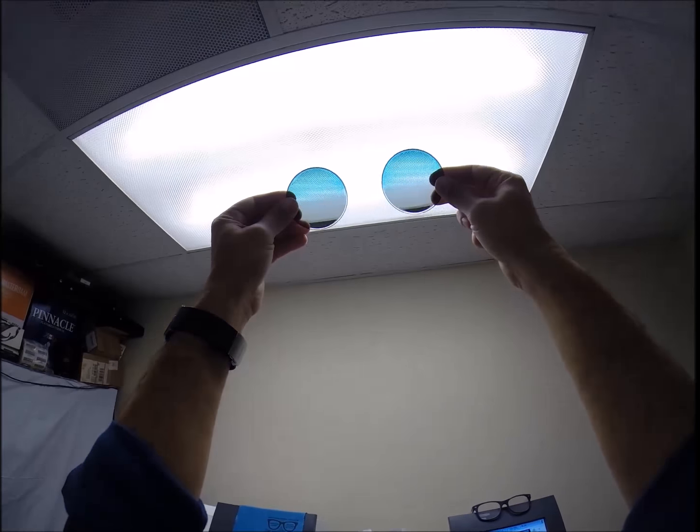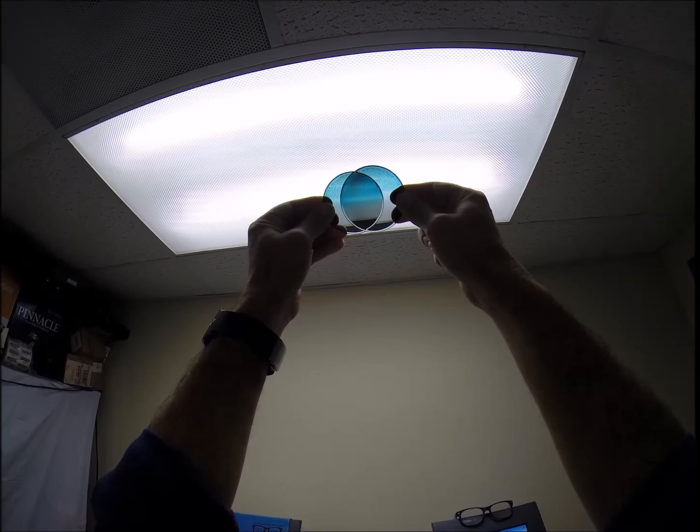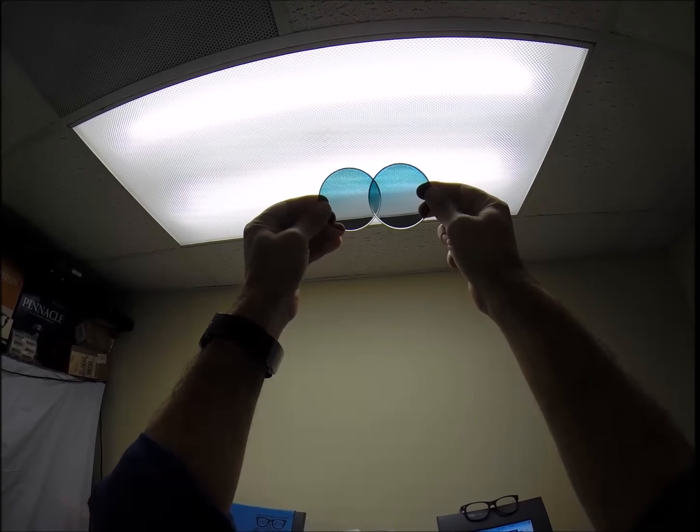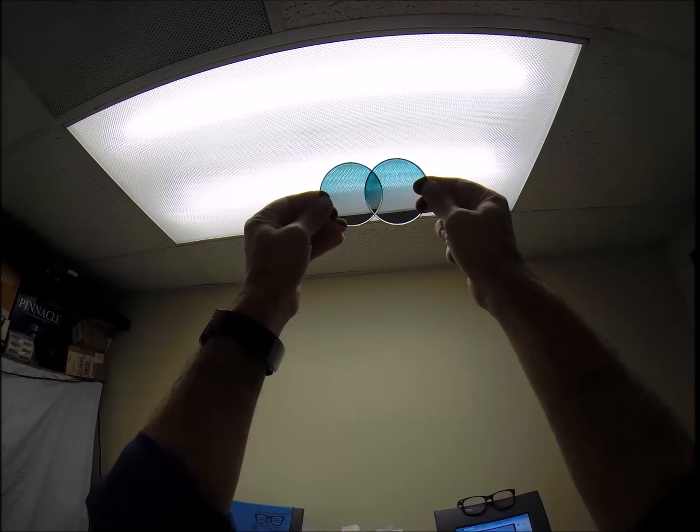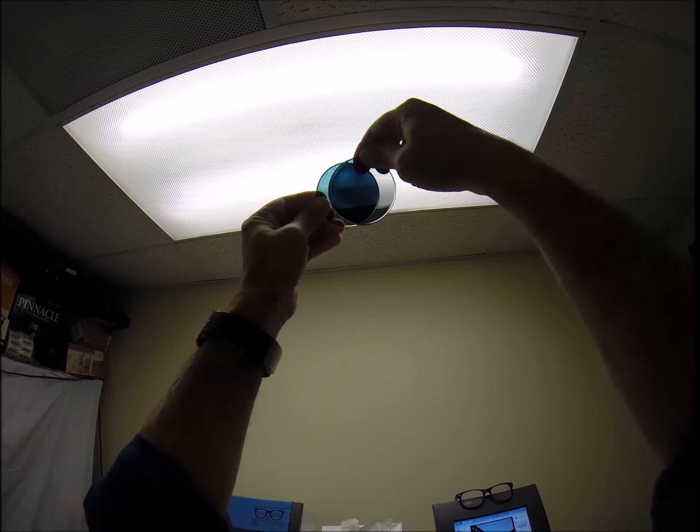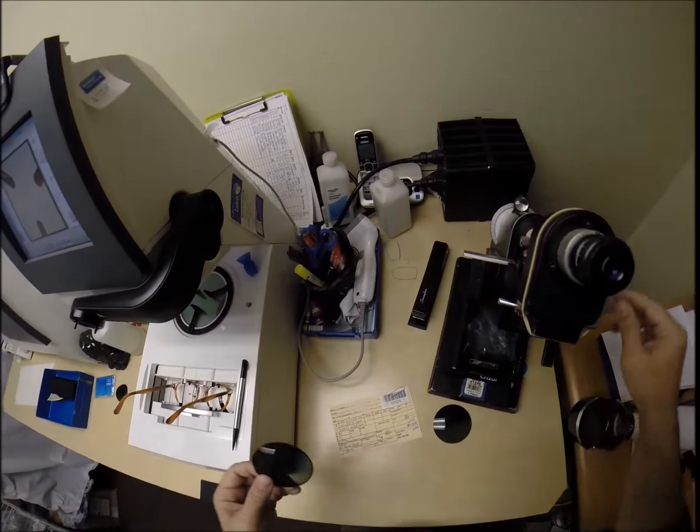You hear the term polar opposites, so you can actually see through them when they're in front of each other, but when you rotate it 90 degrees, it goes pitch black. That's how you can tell if one lens is polarized. It's a specialized horizontal filter that blocks all glare on the horizontal meridian. When it's turned vertical, it blocks all light. So that's that lesson for today.